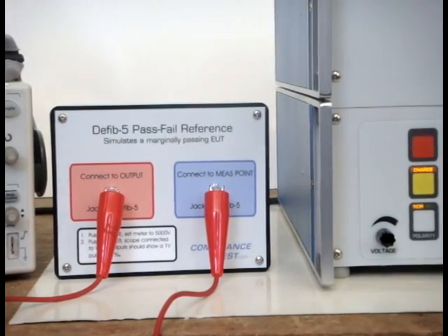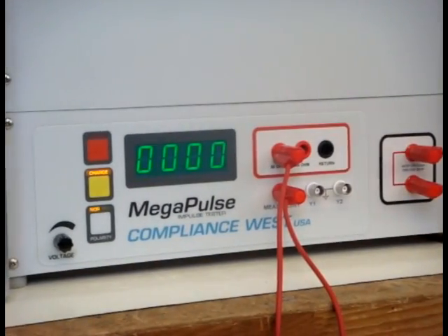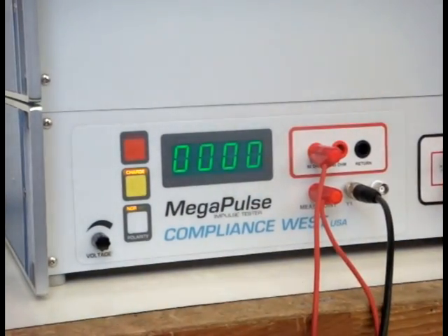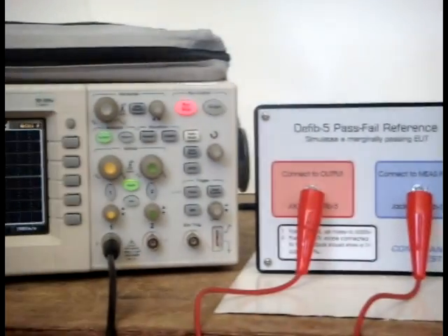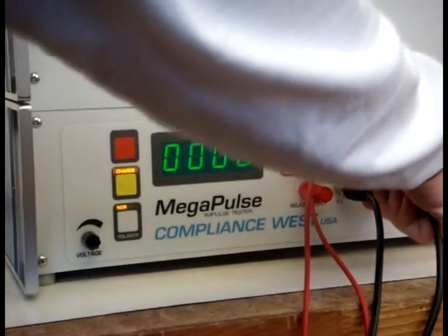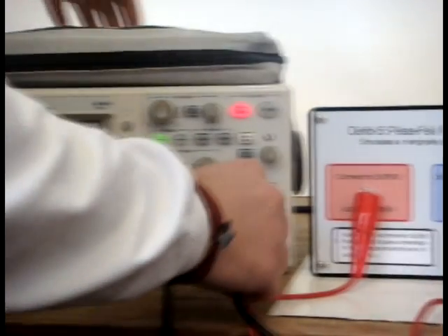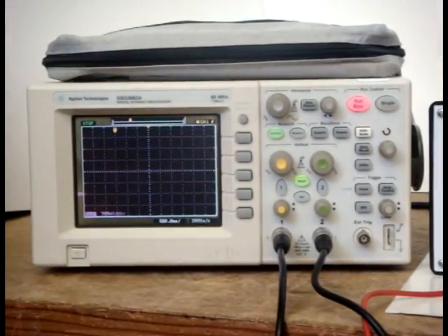Connect the BNC marked Y1 to channel 1 on the oscilloscope and the BNC marked Y2 to channel 2 on the oscilloscope using the BNC cables supplied with the oscilloscope. Note: be sure the BNC cables you are using are actual one-to-one oscilloscope leads. Use of other cables with the correct terminations may not yield correct results.